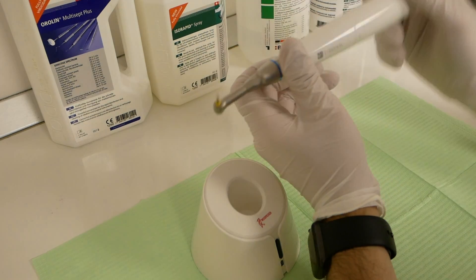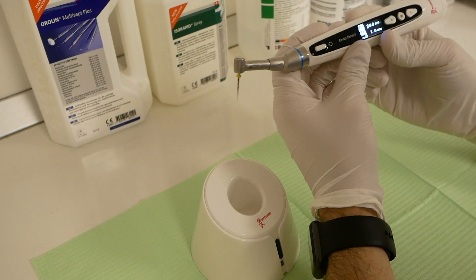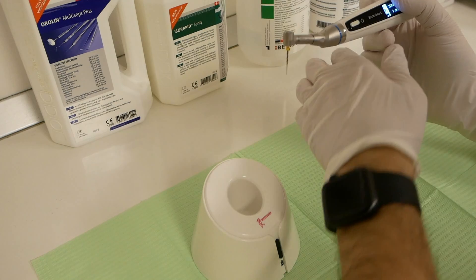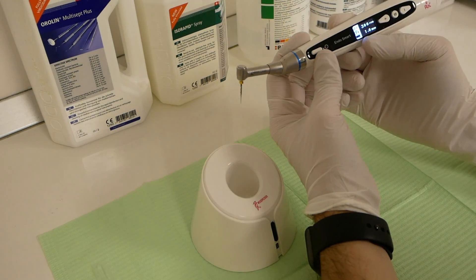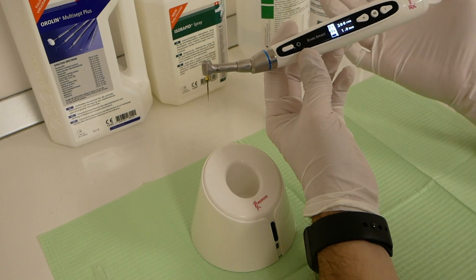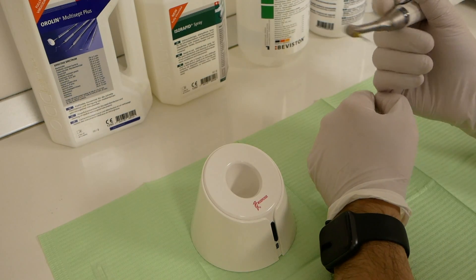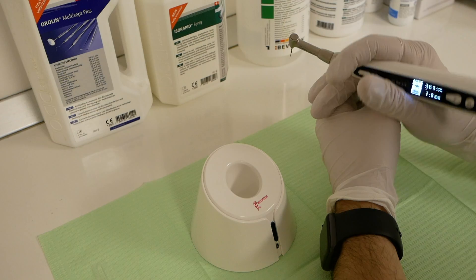The battery of the device is pretty good. It lasts, depending on your workflow, but it lasts for a good several days of treatment, and it also charges very quickly. As I mentioned, it's very light. You can use it for several hours without any issues.